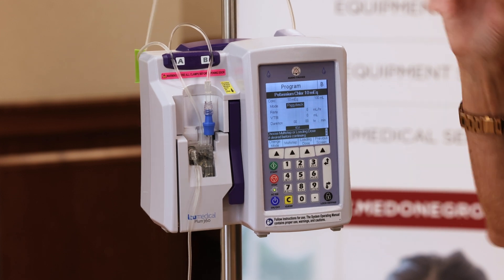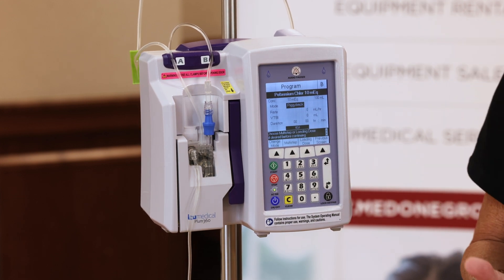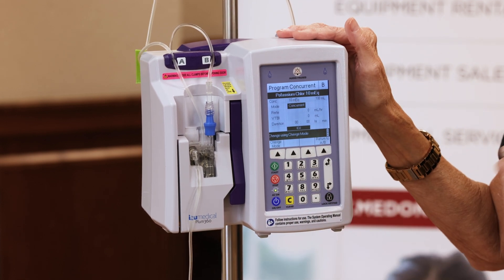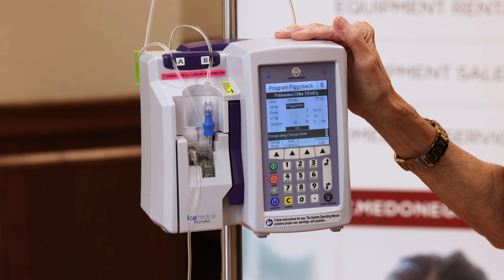It is in the piggyback mode. However, if you wanted to change it to a concurrent delivery, this is where you could change the mode — you can see it will change to concurrent. So let me go back to piggyback.